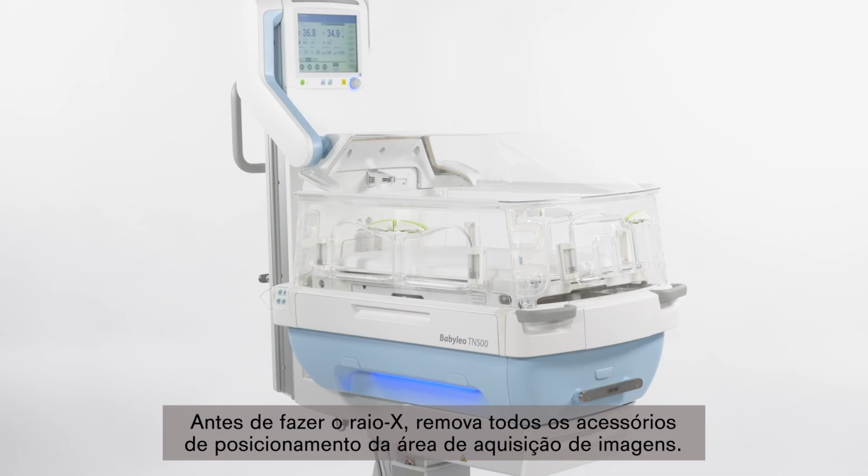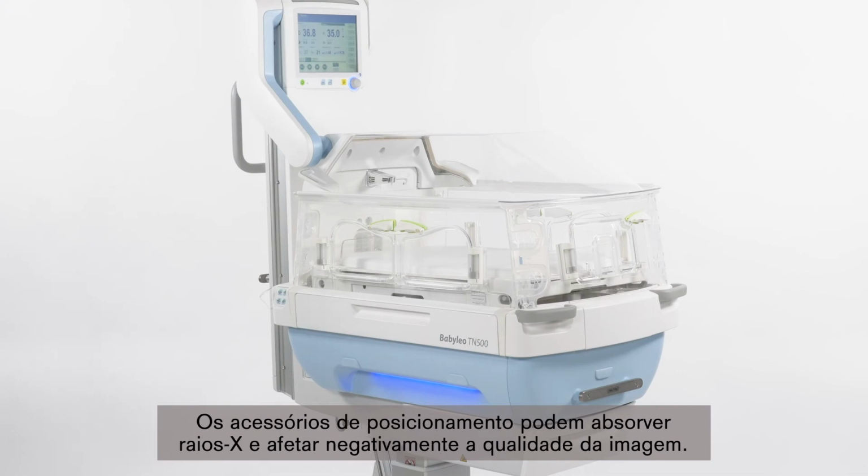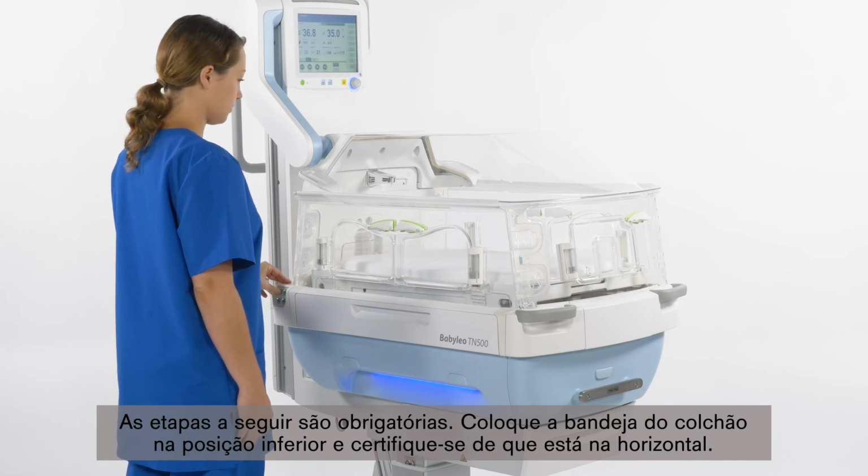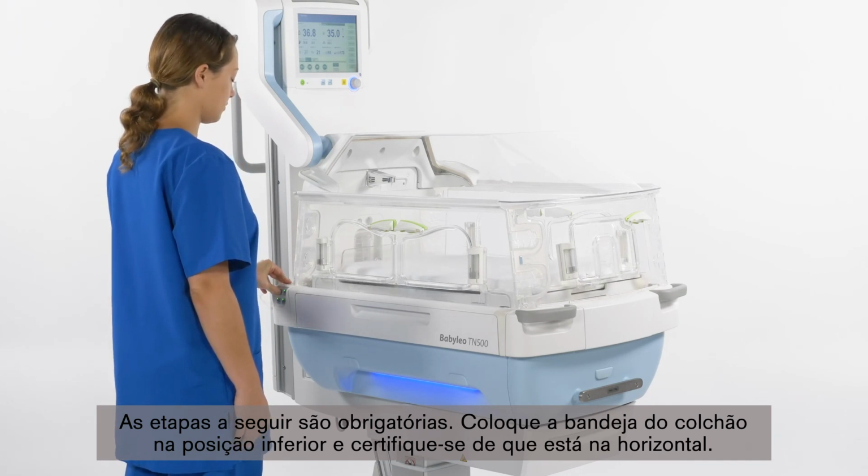Prior to taking the X-ray, remove all positioning aids from the imaging area. The positioning aids may absorb X-rays and adversely affect the image quality. The following steps are required. Bring the mattress tray into the bottom position and ensure it is horizontal.